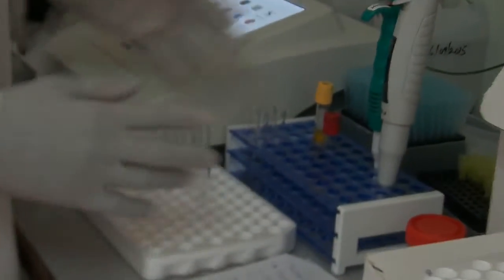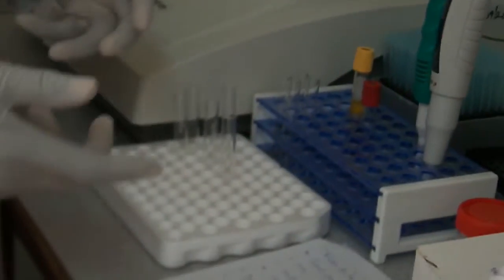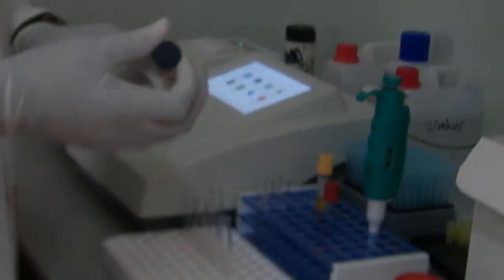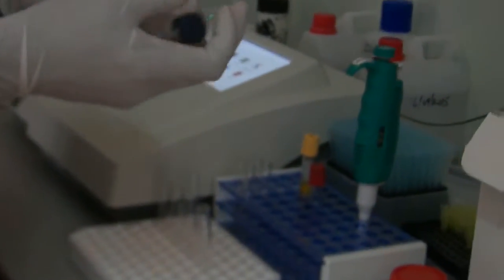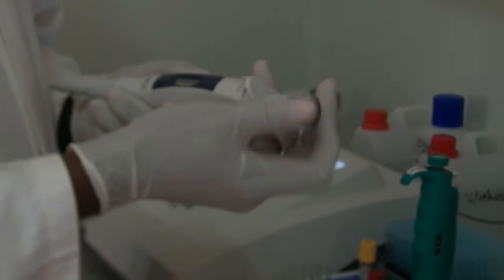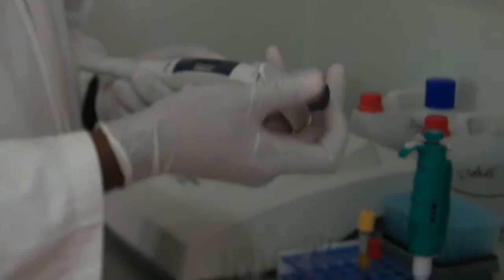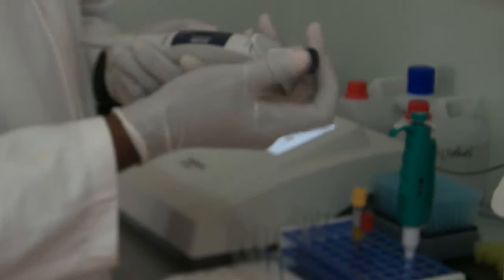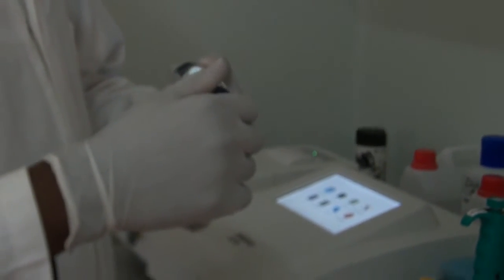Here with me is my setup. I already have a number of items arranged and we're going to look at total cholesterol first. So to do total cholesterol, you need to get your items ready. Set the transfer pipette, automatic transfer pipette. Make sure it is at 1000 microliters.